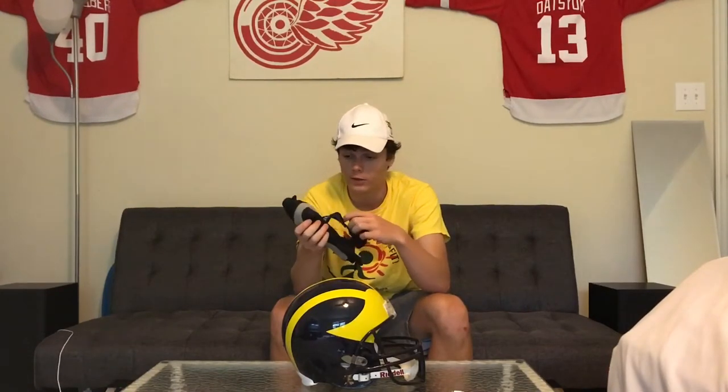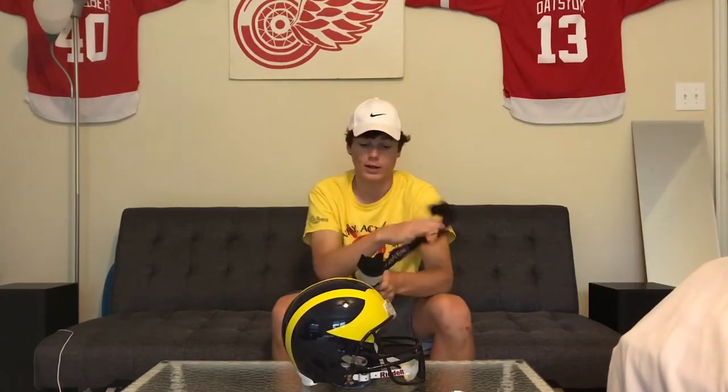This is after a lot of wear and tear, and the Aircast itself was only about $25, so it just was not a lot of money comparatively to other ankle braces — and it worked really, really well. Some things I like about it: complete mobility forwards and backwards, there's complete flexibility that way. It just doesn't allow your ankle to roll, which is nice.